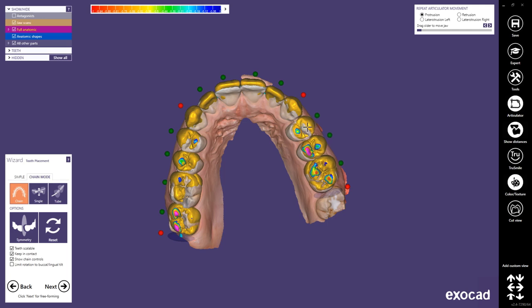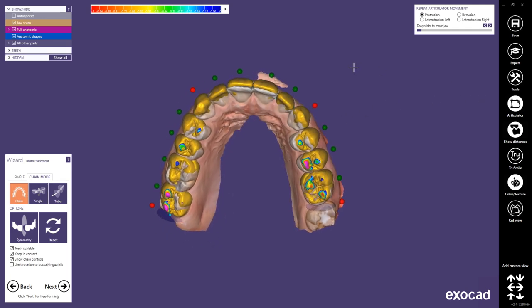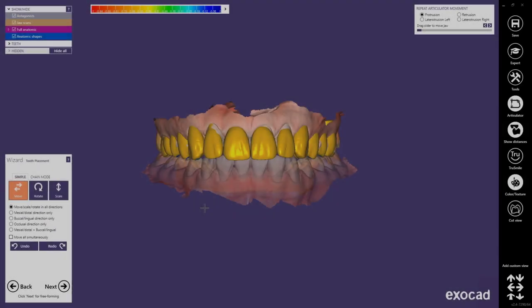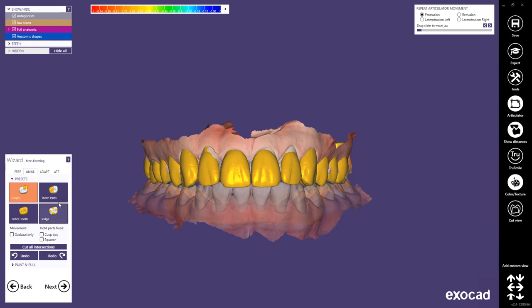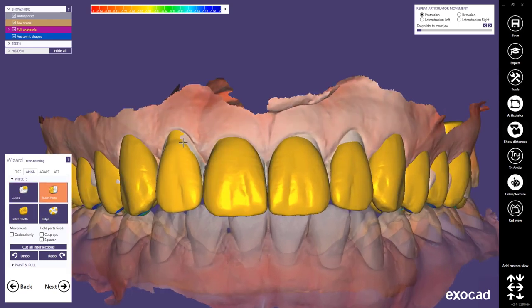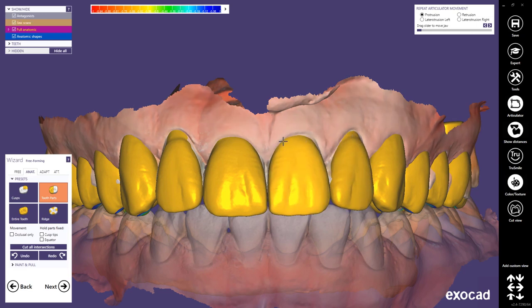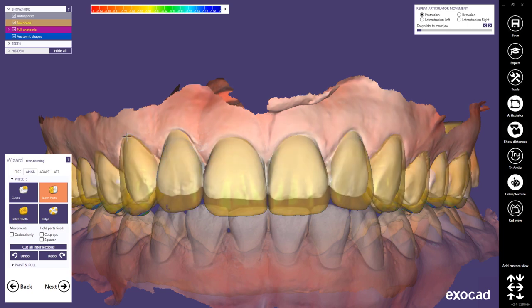Once you lock the canines into place you can adapt the incisors and the premolars as well. Once you are happy with the setup of your teeth you can go next — this would also be the perfect moment to switch to expert mode and start the smile creator if you wanted to. In the freeform step you can adapt the cervical areas of your anatomical shapes. I recommend modeling them in a way that they completely enclose the natural teeth, which not only helps retaining the minimum thickness but also gives them a more natural look. Also pay attention that the anatomical shapes don't overlap the gingiva, so this won't be cut off later and create hurtful edges for the patient.